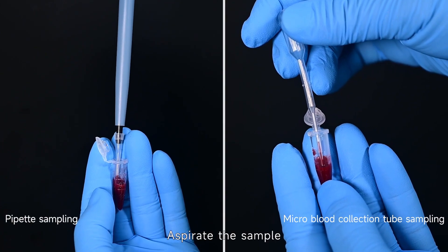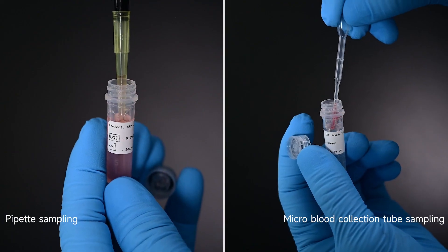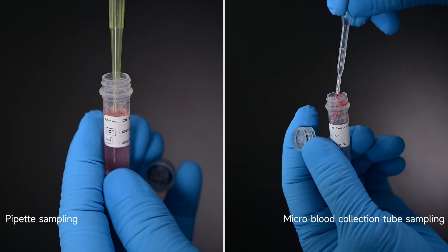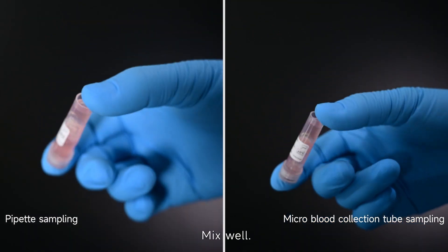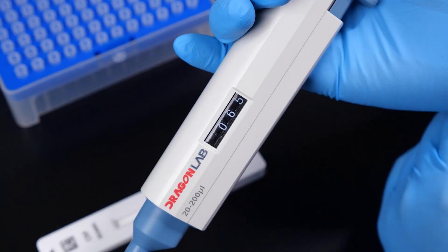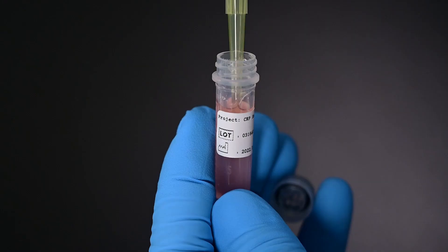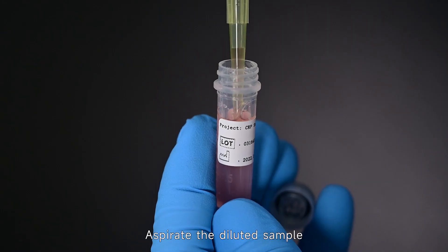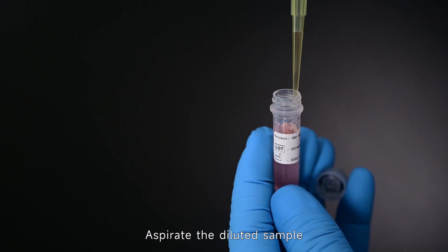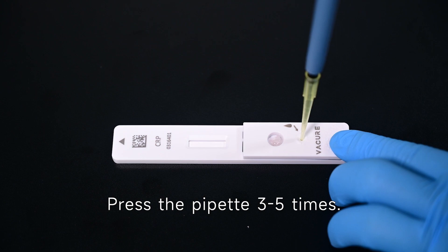Aspirate the sample into the diluent. Mix well. Aspirate the diluted sample into the sample well.